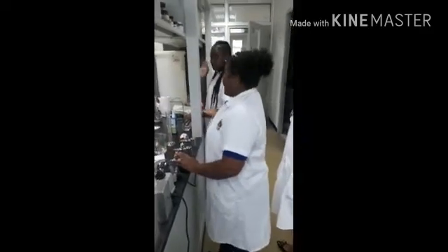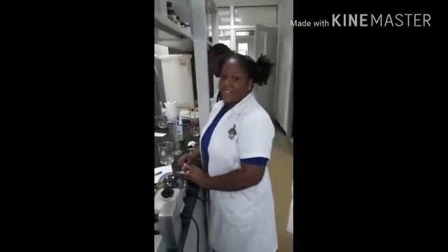Hi, I'm student nurse Brown. And I am student nurse Green. And together we'll be conducting the 24-hour urine collection test. Hi, my name is student nurse Anika Francis, and this is student nurse Deans. We'll be conducting the specific gravity test.